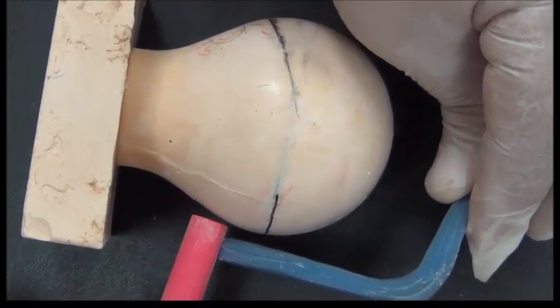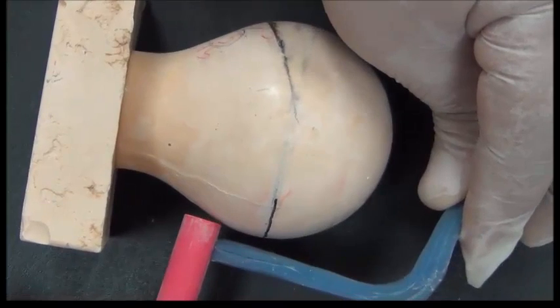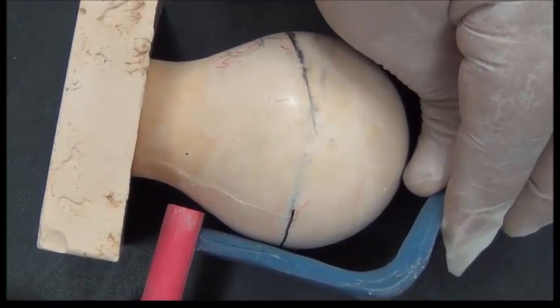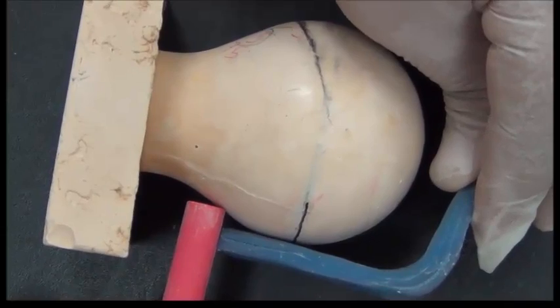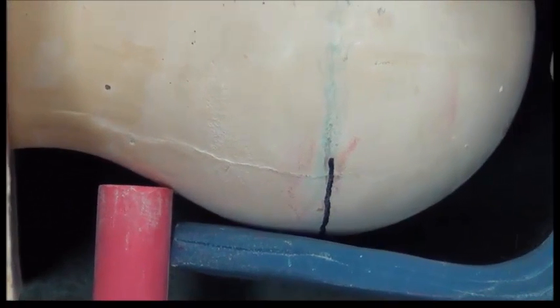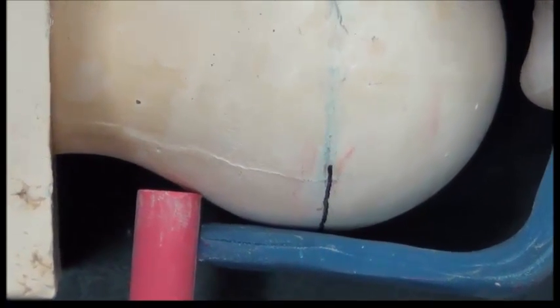If I'm looking at this undercut, the vertical is not touching, so this is incorrect. If I'm looking down at this undercut, the horizontal component is not touching the tooth, so this is also incorrect. They should have two simultaneous contacts on the tooth at the same time to make sure that this undercut is measured correctly. We will now redo it on the tooth on the cast.